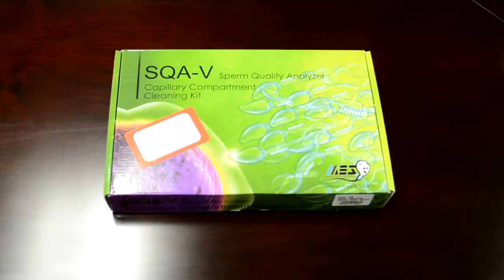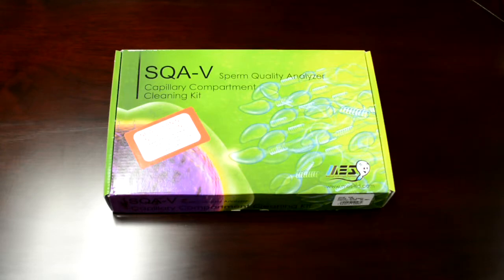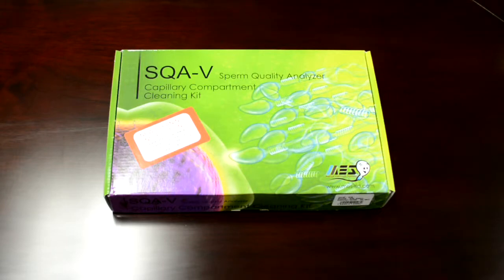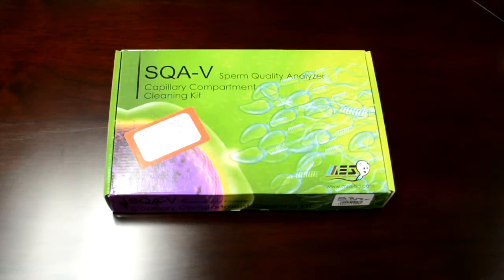In order to keep your SQAV reliable and accurate, the instrument needs to be cleaned. This is a two-step process. There are recommendations for once-per-day cleaning on days that you run samples, and once-per-week cleaning, regardless of how many samples you've run.